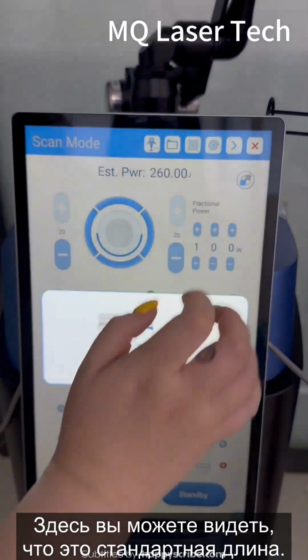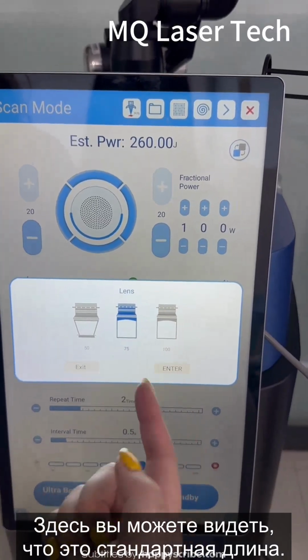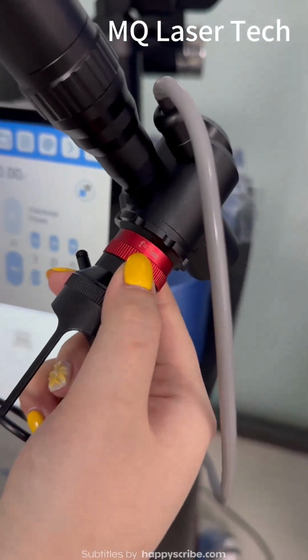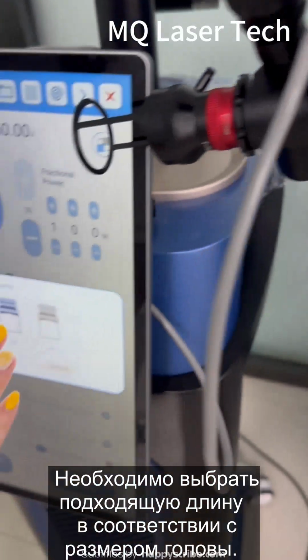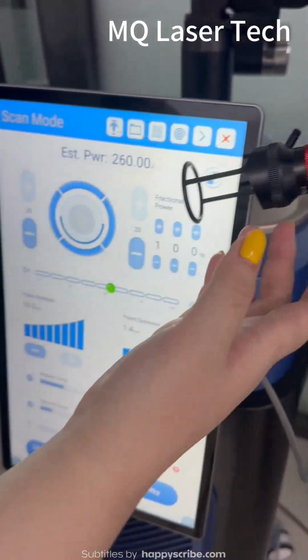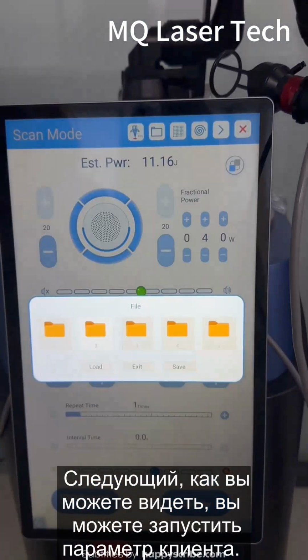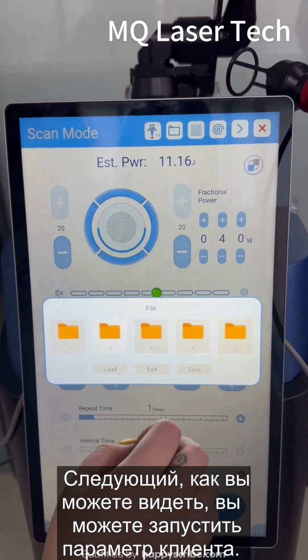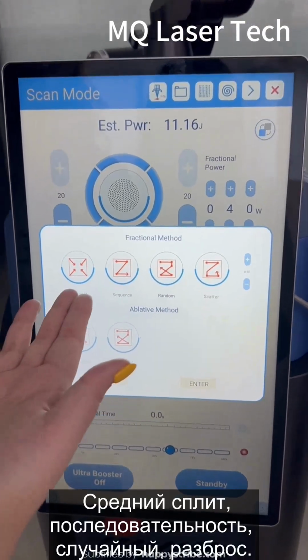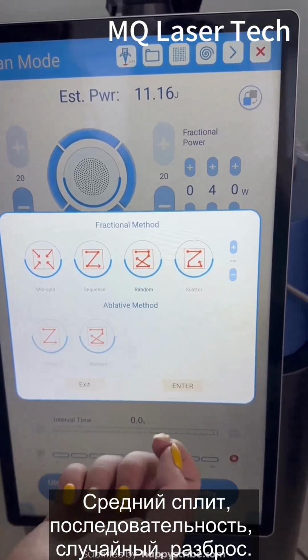Here you can see, this is the default lens. When you receive the machine, you will receive three different lenses: 50, 100, and 75. You need to choose the right lens according to the head. The next one, here you can see, you can set the custom parameters. The next one is the fractional method: mid-split, sequence, random, scatter.